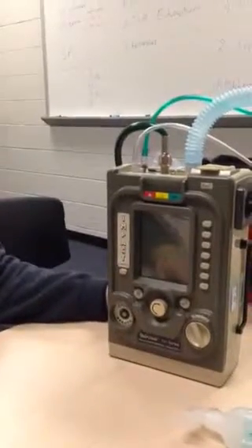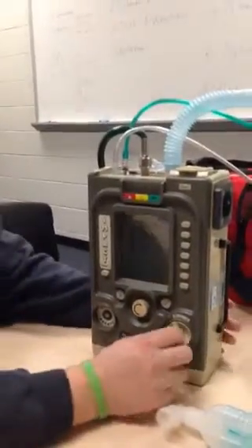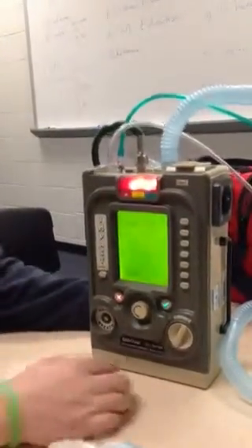This video is going to be on just the basic setup for an intubated patient that we're going to ventilate. So the first thing is, I'll let Mike talk. Turn the ventilator on, let it go through its startup.